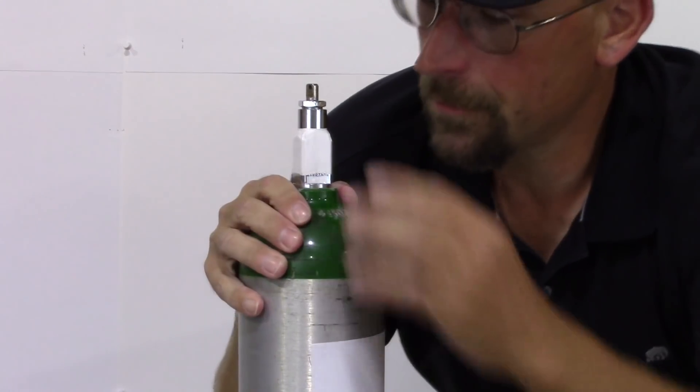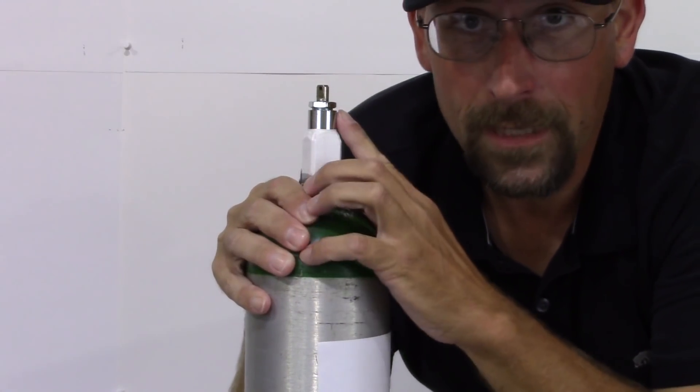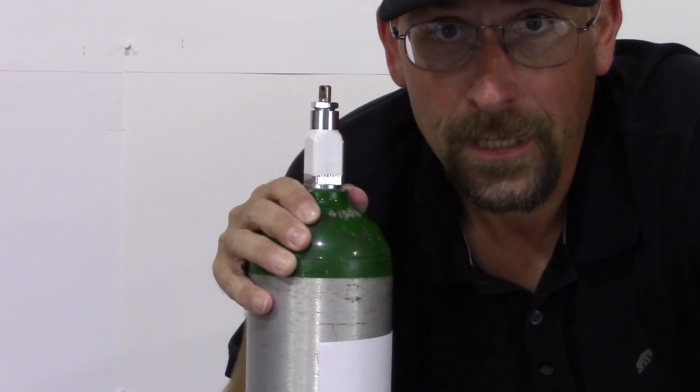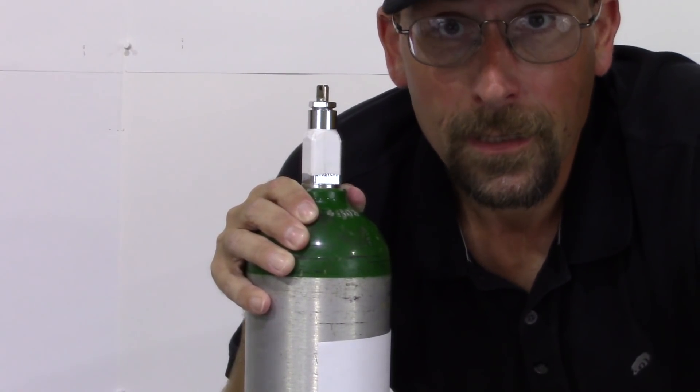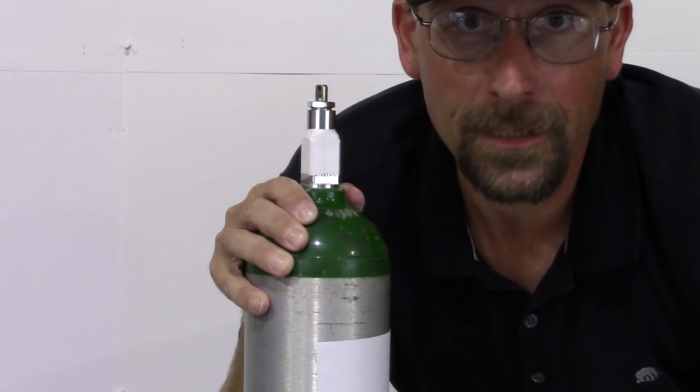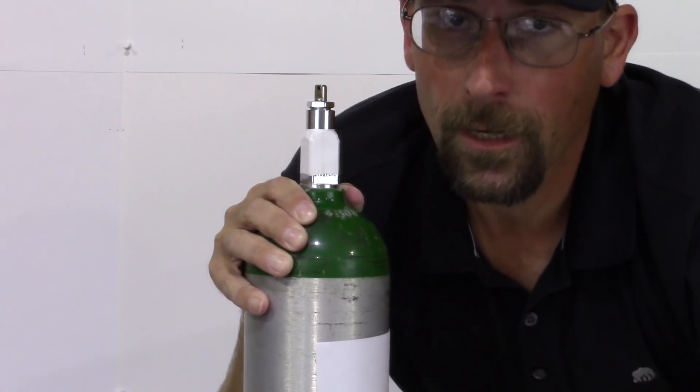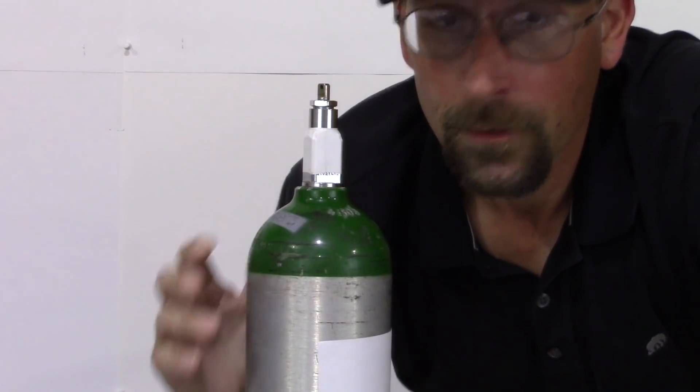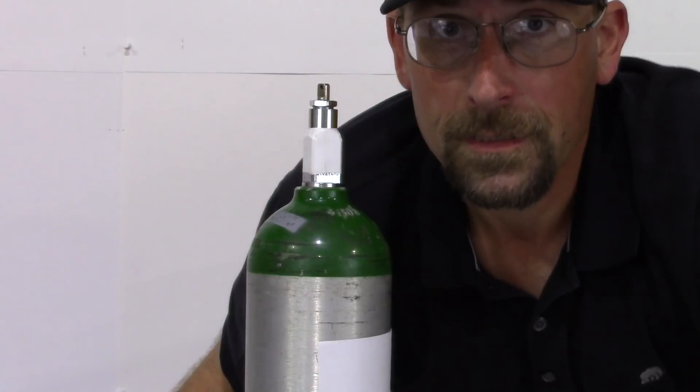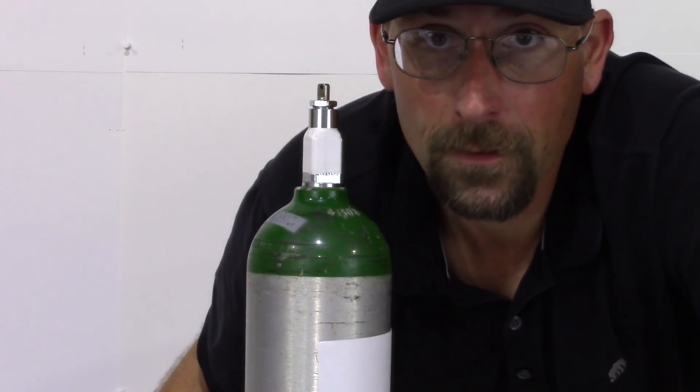The thing is with the tanks, the tips can go bad at times. I always warn everybody when they go out, check your tanks and always carry a spare. And if something is wrong, if there's half or empty, which should be rare, but if it does happen, you'd want to mark the tank and notify your providers so they can open this up and fix it. You don't want to get another one down the road.